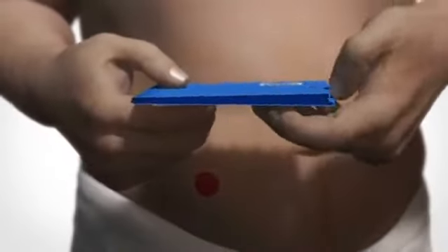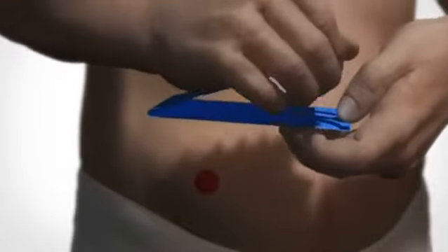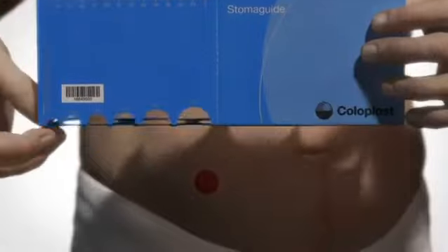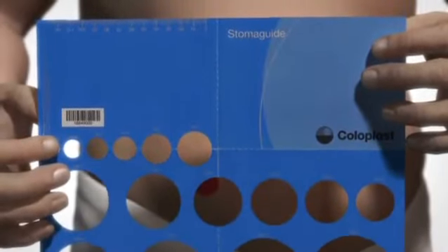To measure the diameter of your stoma, use the stoma guide. Try the different pre-cut holes in the stoma guide to find the hole size that best fits your stoma.